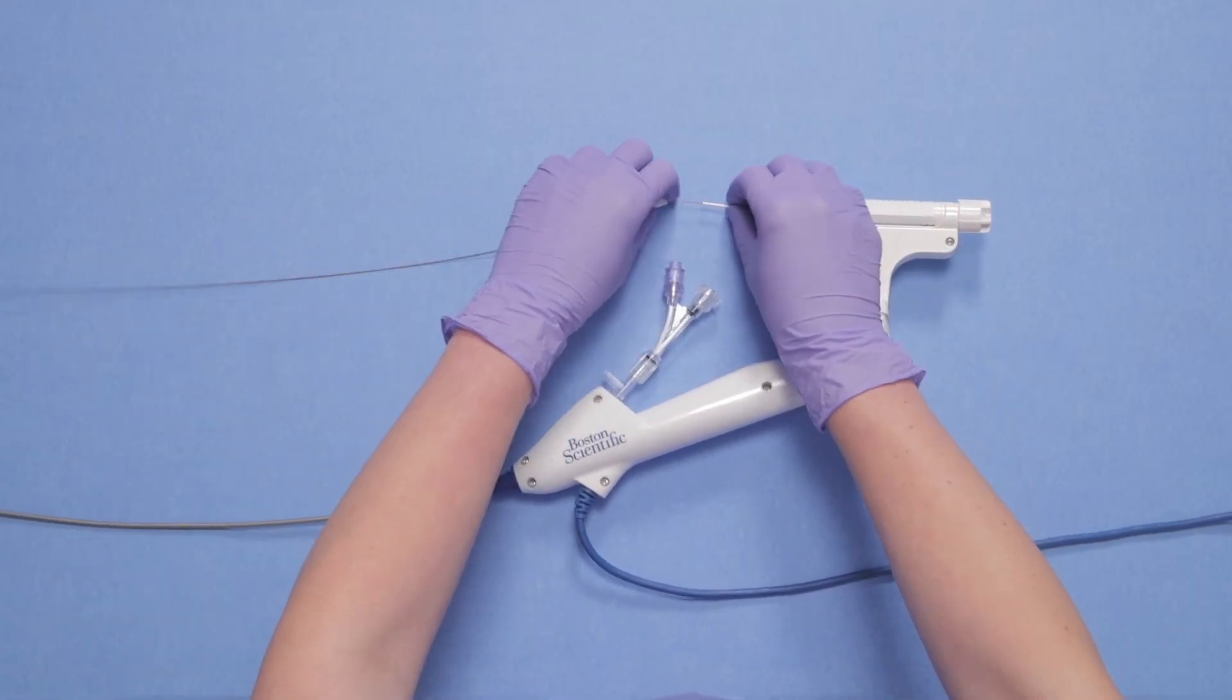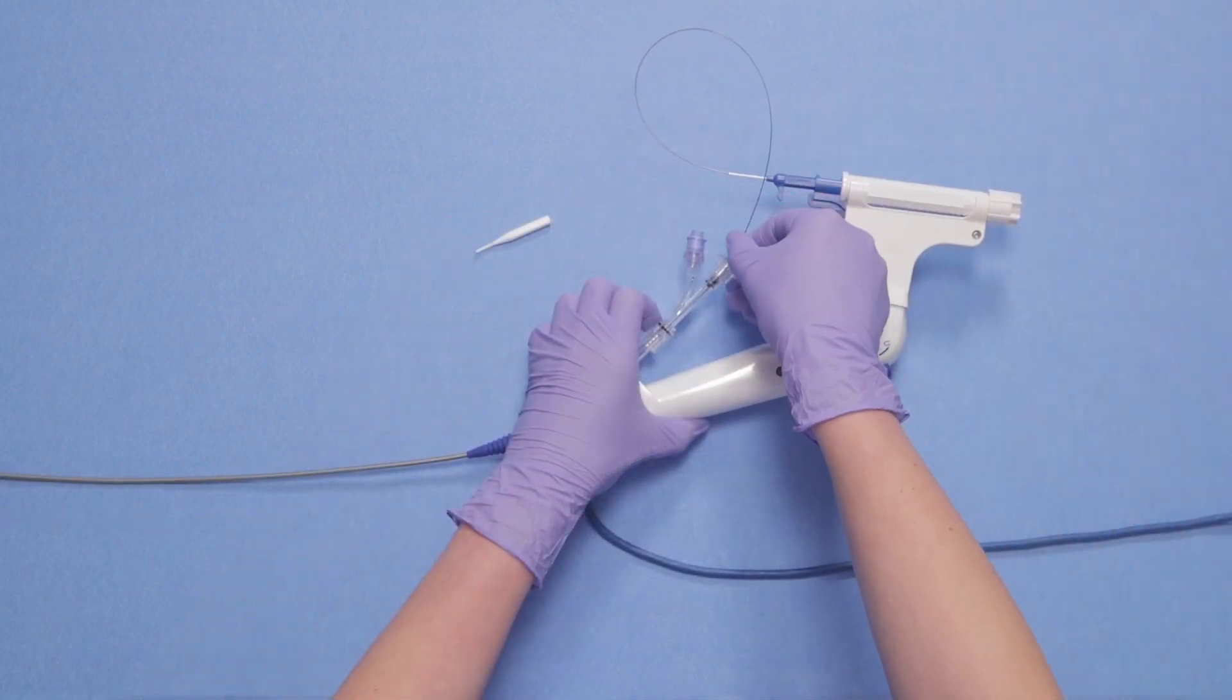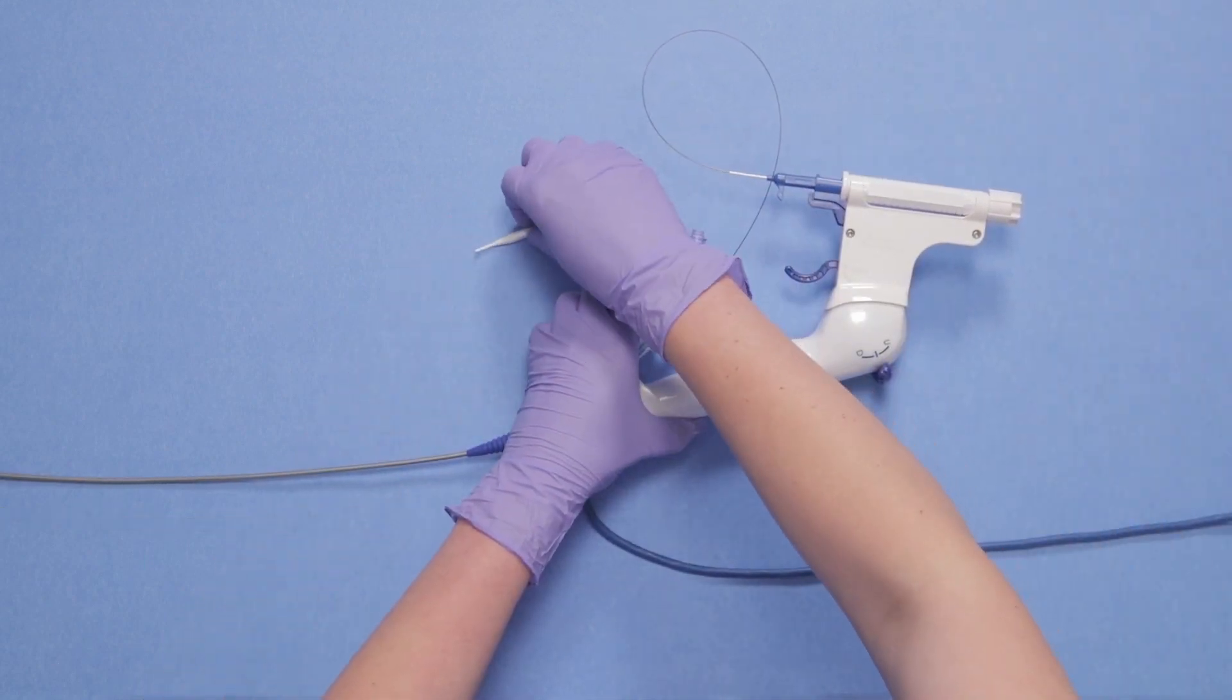Then feed the basket through your scope adapter. Ensure the adapter is completely open before feeding your device through or use an introducer.